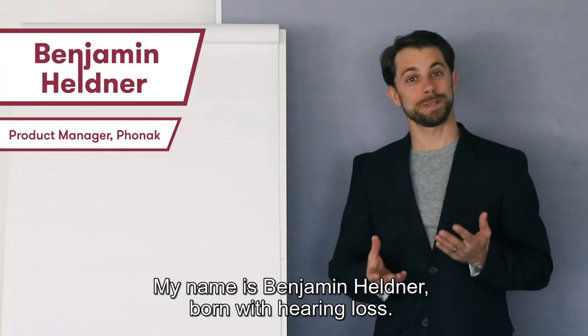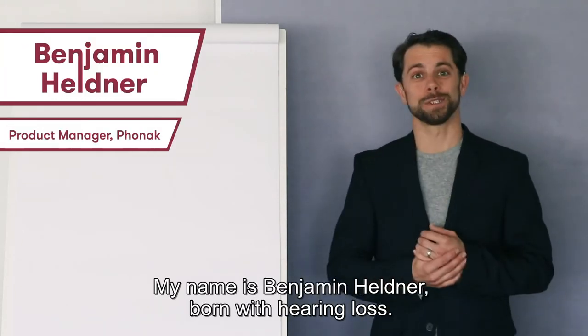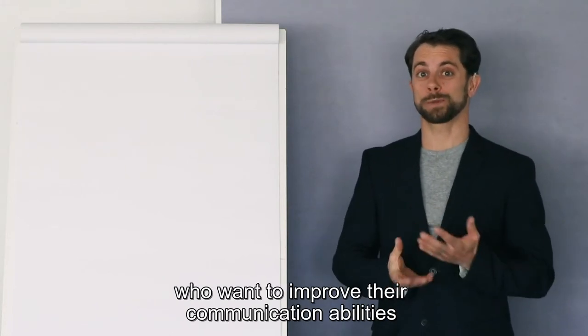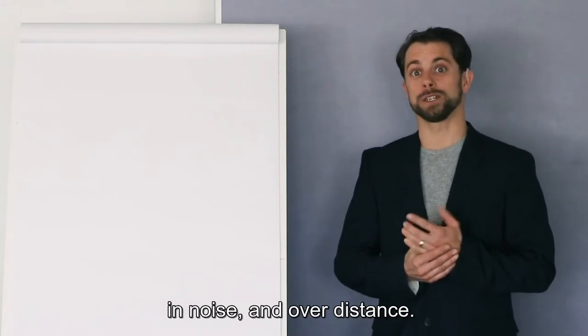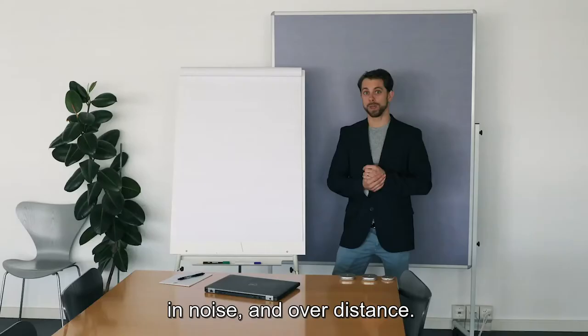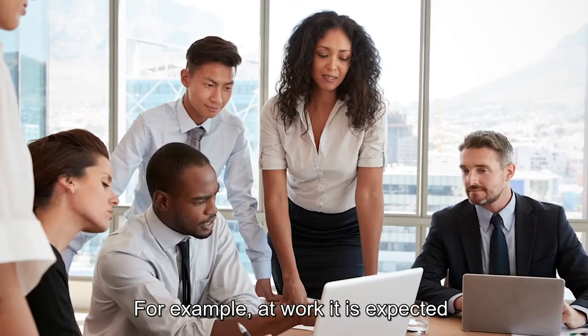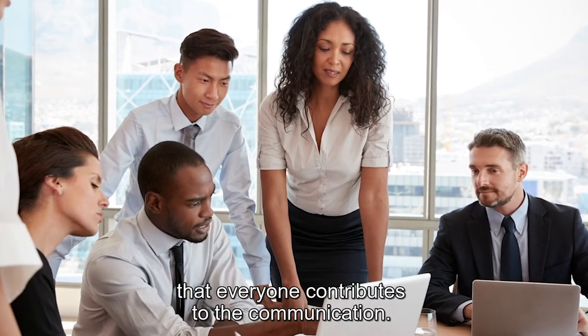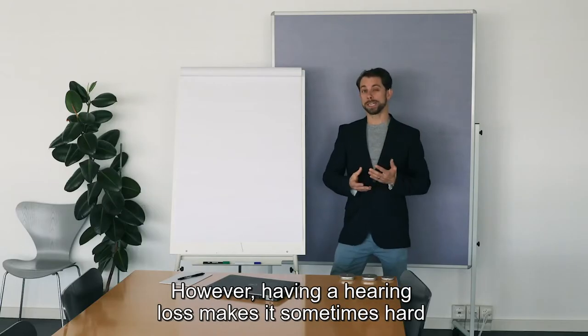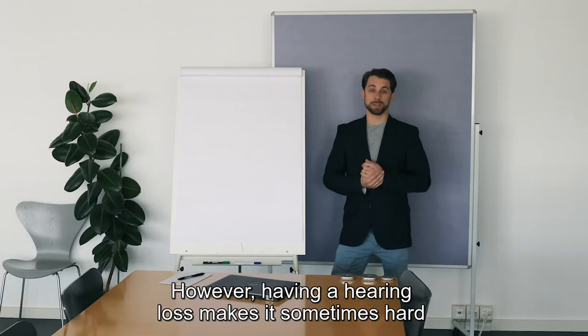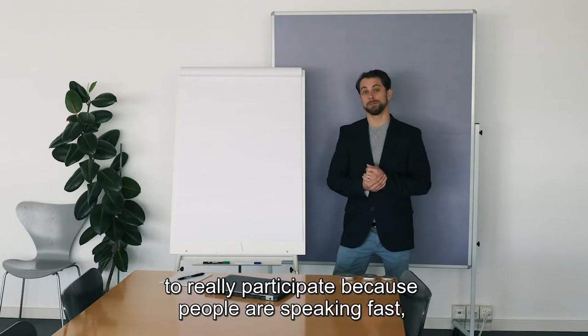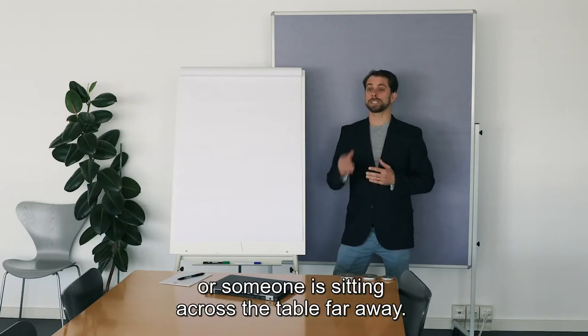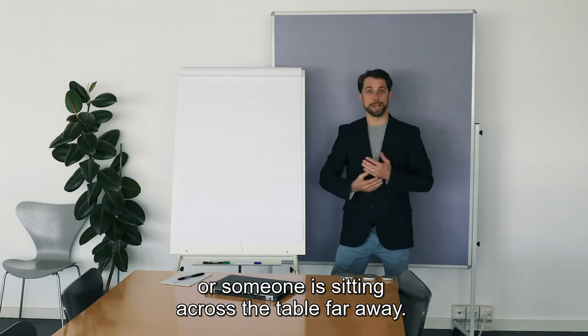Hello everyone, my name is Benjamin Heldner, born with hearing loss. Welcome to my tutorial for people with hearing loss who want to improve their communication abilities in noise and over distance. For example, at work, it is expected that everyone contributes to the communication. However, having a hearing loss makes it sometimes hard to really participate because people are speaking fast, may have an accent, or someone is sitting across the table far away.